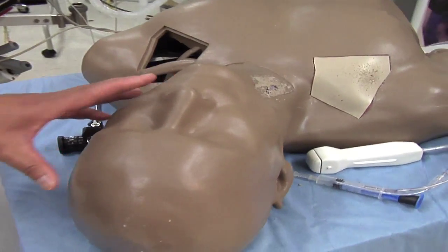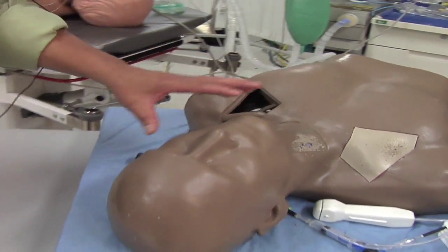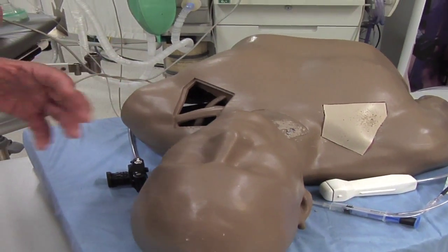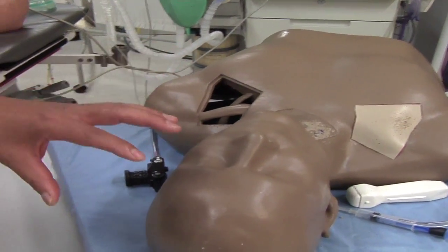What we have here is a physical embodiment of an actual patient, an actual person, and we obtain medical scans through CT and MRI of the human, and then that was created using a 3D printer. So it's totally anatomical.